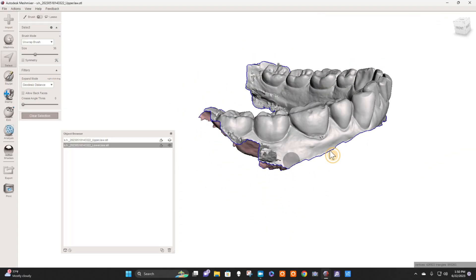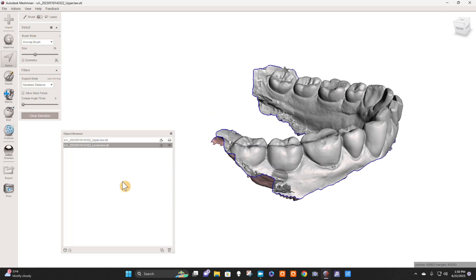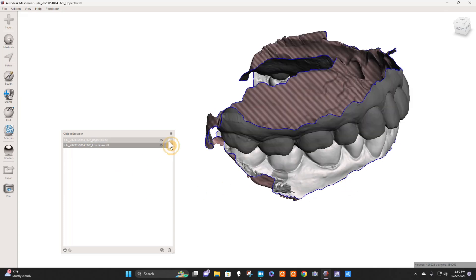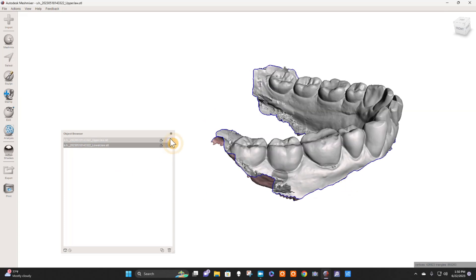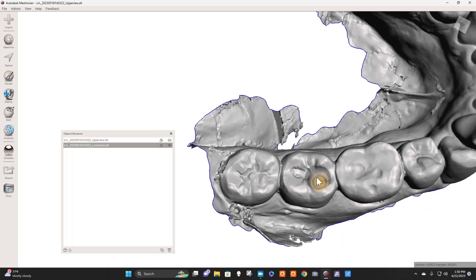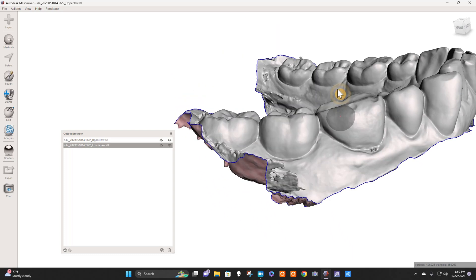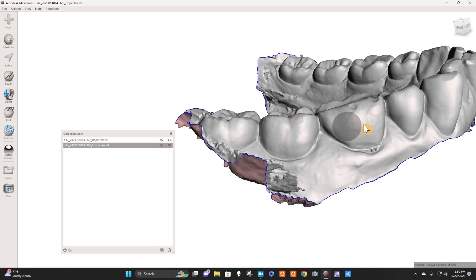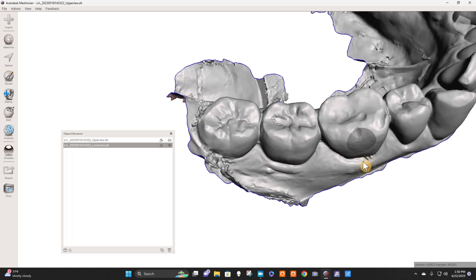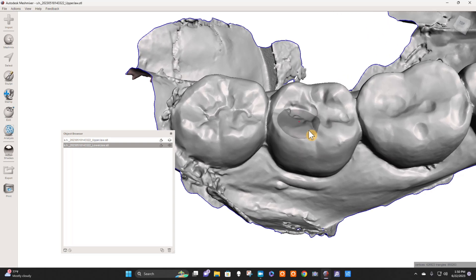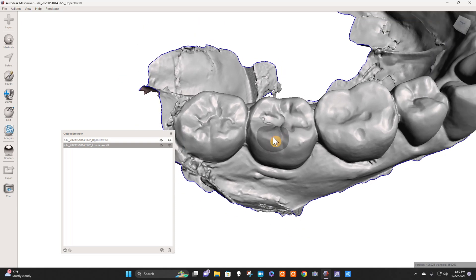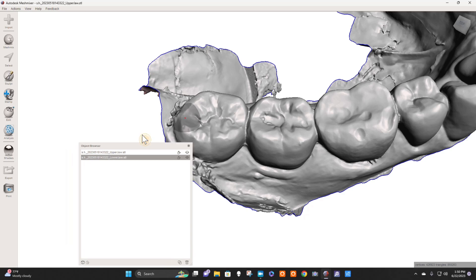Alright guys, we have somebody struggling to design and mesh in Meshmixer, a little Nesbit for an immediate extraction. I guess they're pulling out this number. It seems like they would be taking this guy out, but I think they're taking this guy out. I'm like 10% sure, but let's go ahead and do it. I'll show you how I do it.